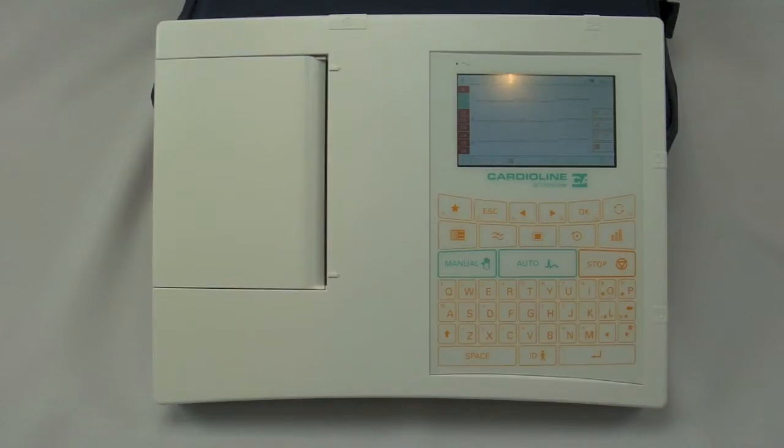BT stands for Bluetooth. Bluetooth is a data transmission protocol that is wireless. The Bluetooth transmission allows you to transmit waveform data in real time to your PC wirelessly.